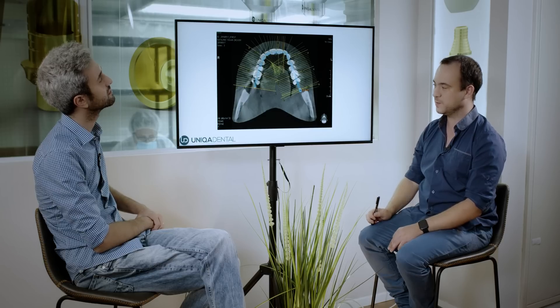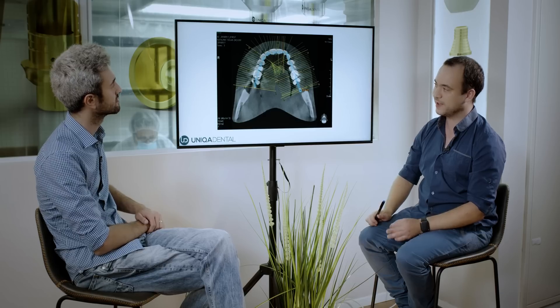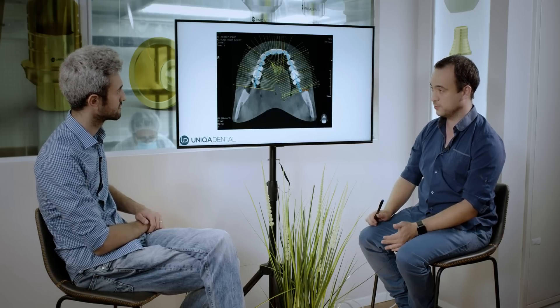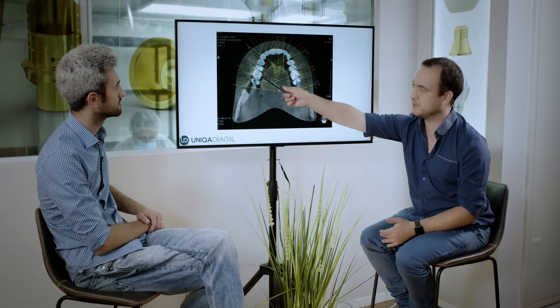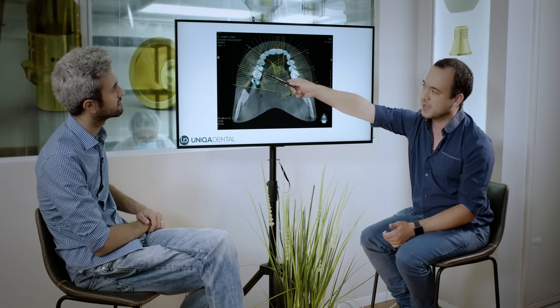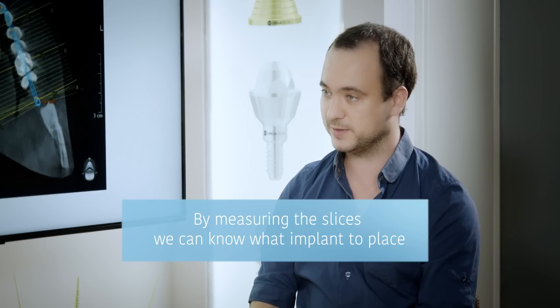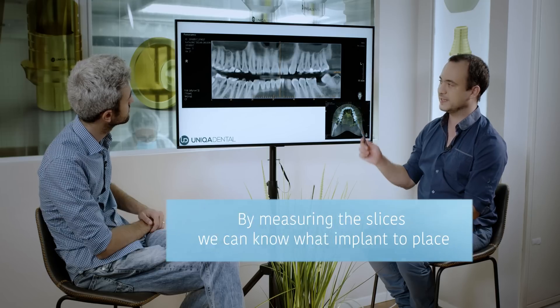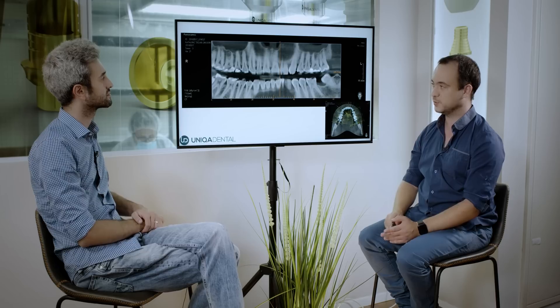Every line has its own number, and it's a cut — a perfect perpendicular cut of every step of the arch of the jaw. So in the future slices I'll know that number 10 is this slice, for example. If I want to place an implant in this area I can use the slice of number 10, and by this slice I can measure the implant that I can place in this place. In here you can see the reconstruction of the jaw using only the blue lines we showed before.